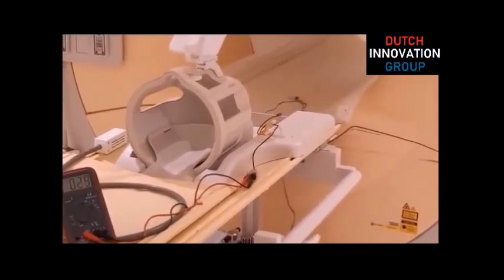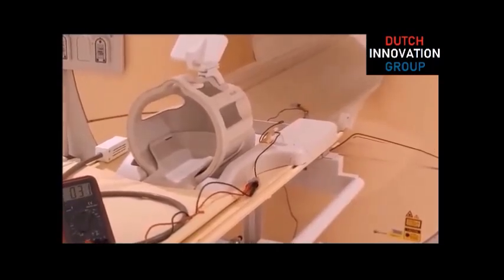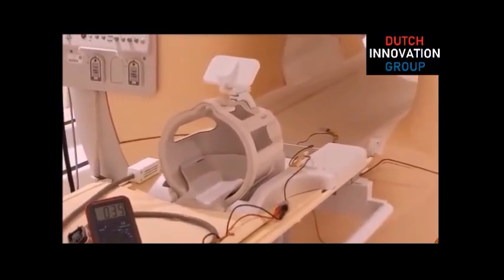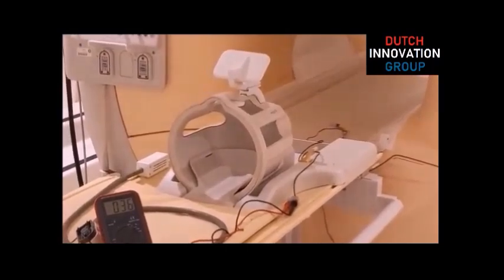The electric power dissipation is very low and can be adjusted to far over 100 degrees Celsius. The models for medical use can be used during a MRI scan in progress. Beside the needles, we also develop thermic scalpels and multi-purpose clips.